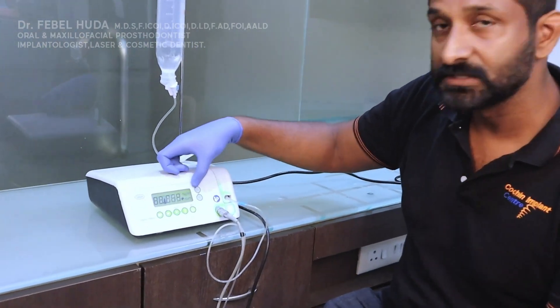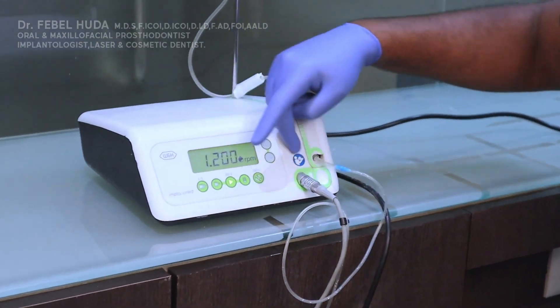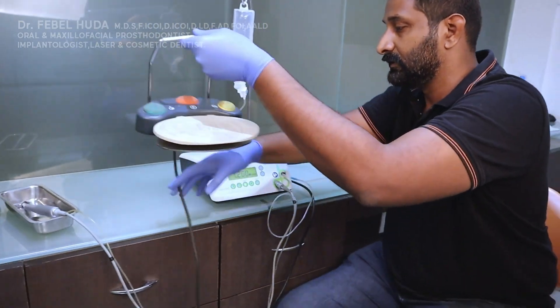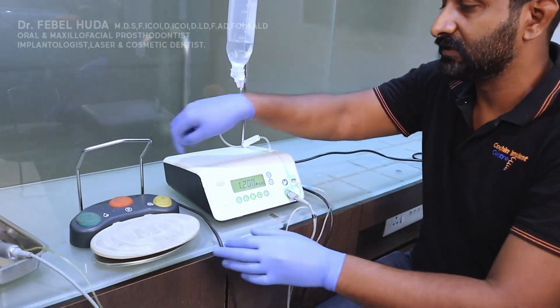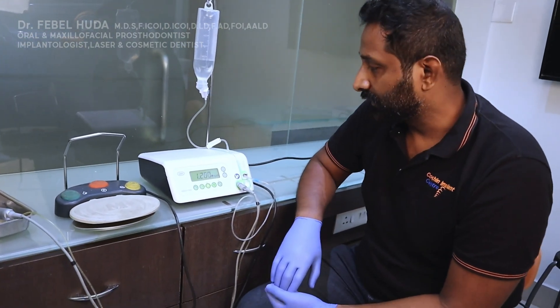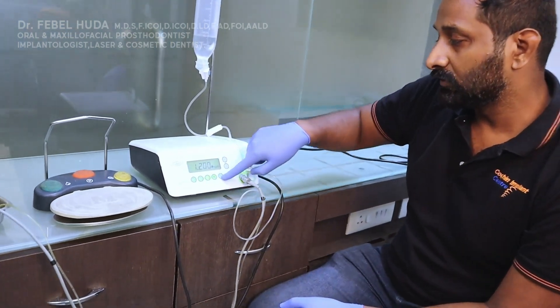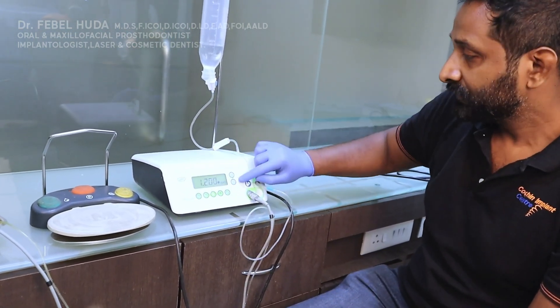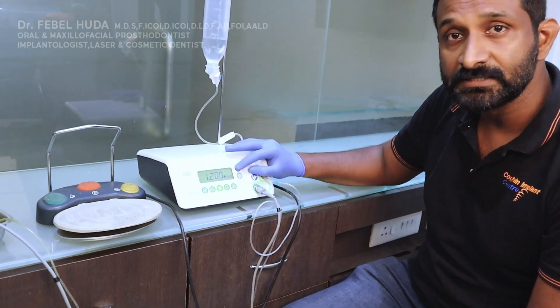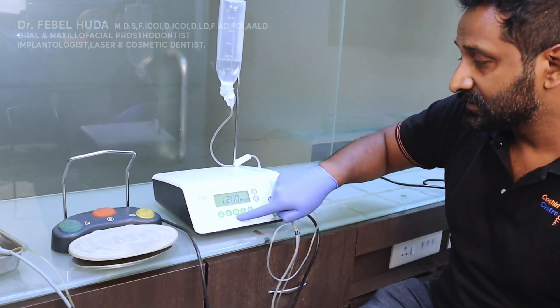The unit is switched on. I'll bring the foot pad up here so you can see everything on the same platform. On the display you can see certain modes, and at the bottom end there are two switches for increasing and decreasing your RPM or torque respectively.